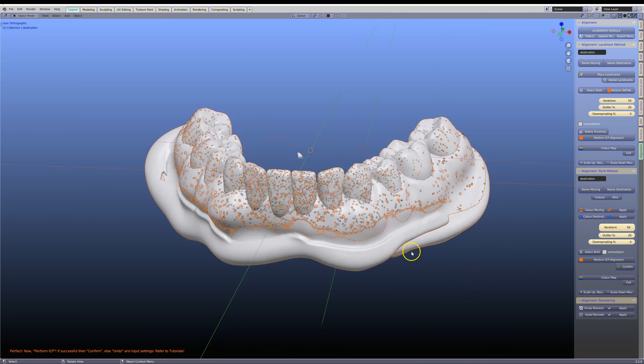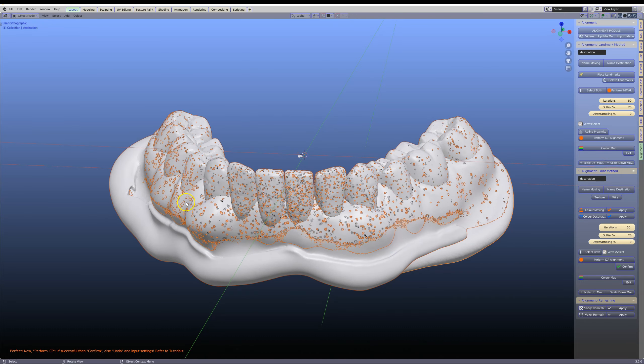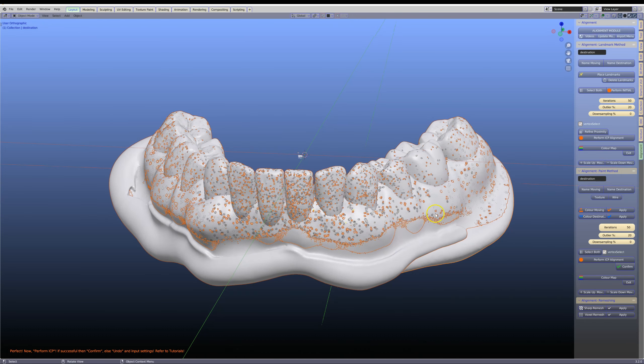Excellent, we've got a good alignment. What's of interest is the fact that we have the common denominator - the common space of a few teeth and gums. The next thing is we're going to go to the denture module where we have our rebasing.